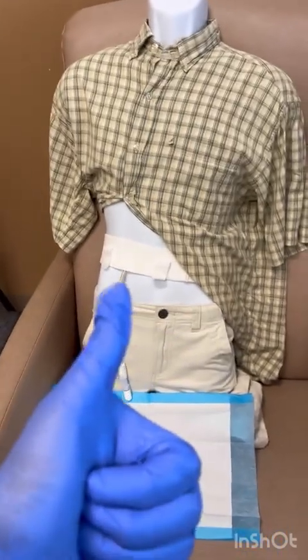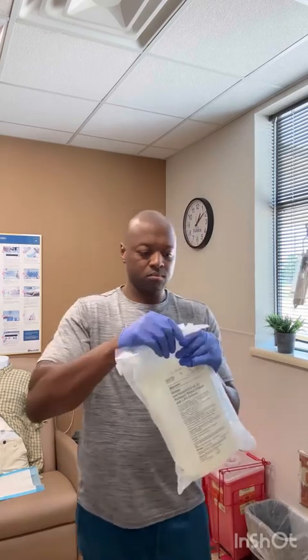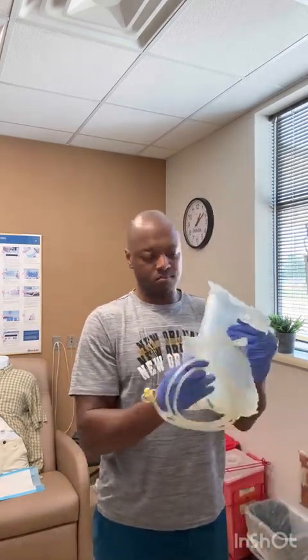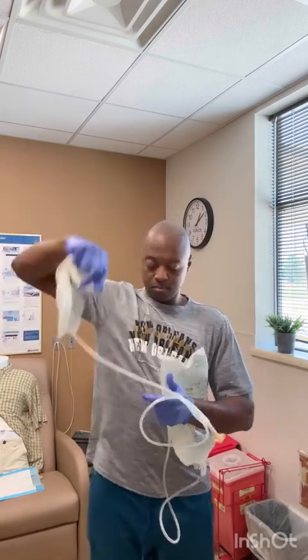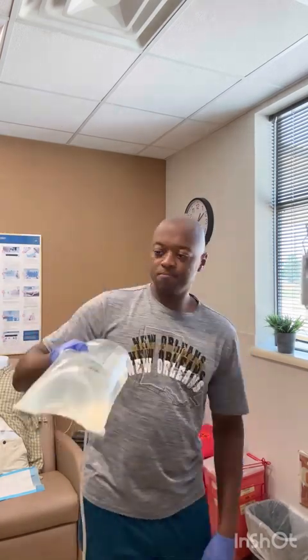Steve here is going to get a blue pad for himself, even though he doesn't have any legs. Now I'm going to open my dialysate bag — peel off that drain bag. It's hard plastic, so just pull it apart. Put that drain bag down shiny side first.